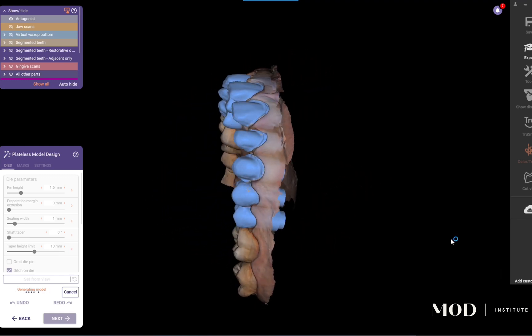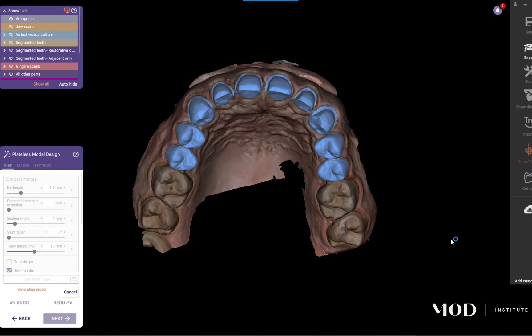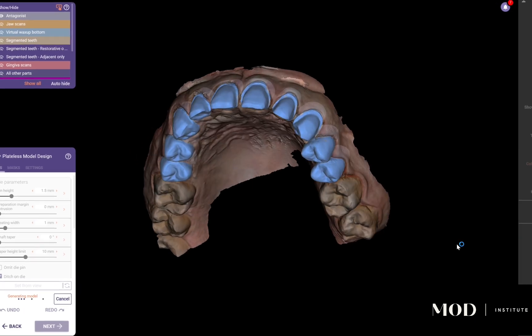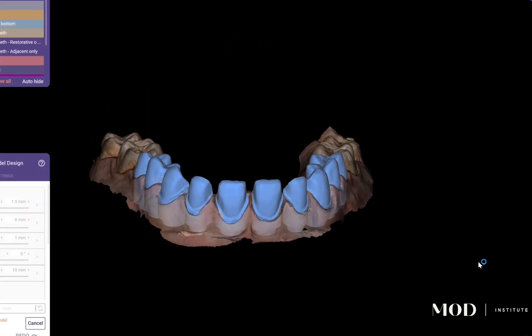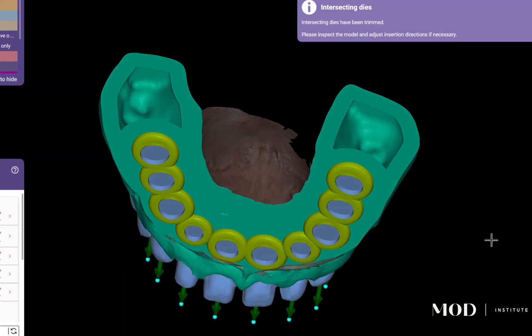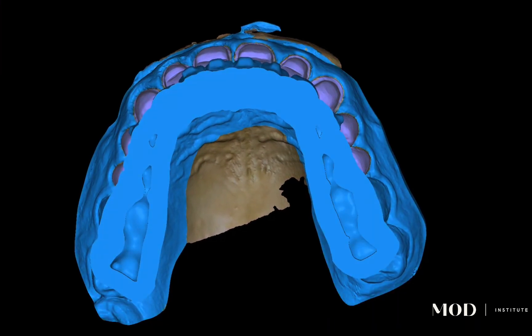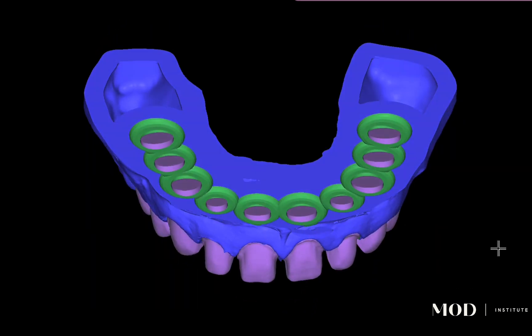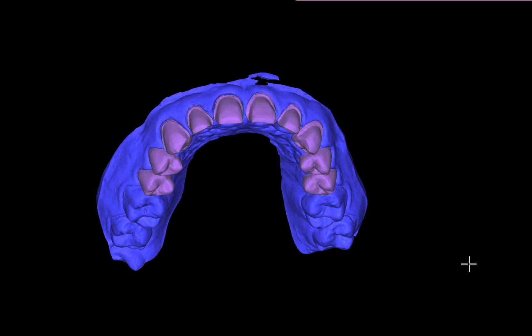The software automatically segmented out those teeth and created these phenomenal little dies. Now it's generating a hollow model that's 3D-printable and perfectly fits these detachable dies — all a result of the AI auto segmentation. That is just so cool. I hope this helps you in your big veneer cases. The power of the AI segmentation really saves time from having to select each individual tooth.